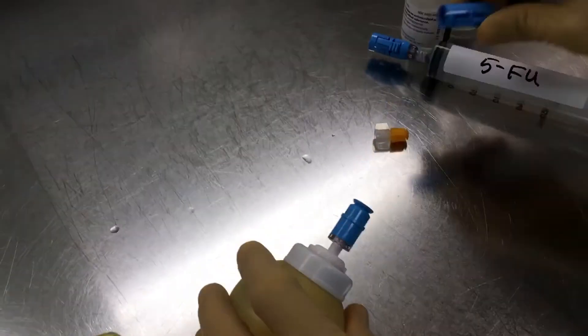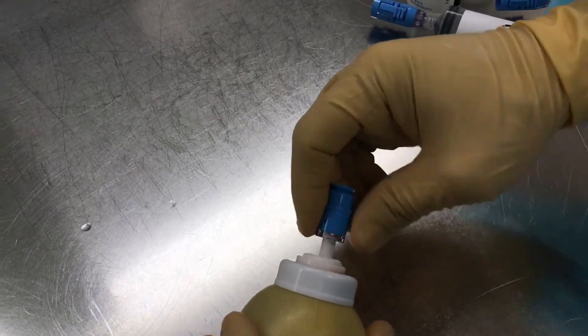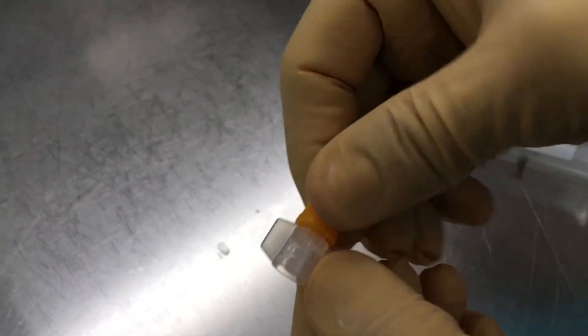The pump will become circular. That's it. At this point, unlock the syringe, unscrew that little connector, and separate. That's it.